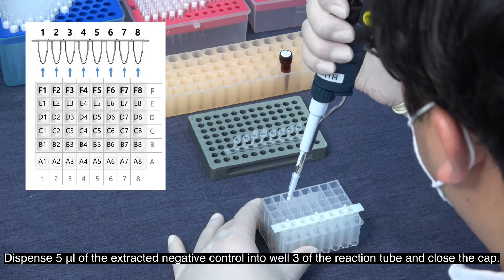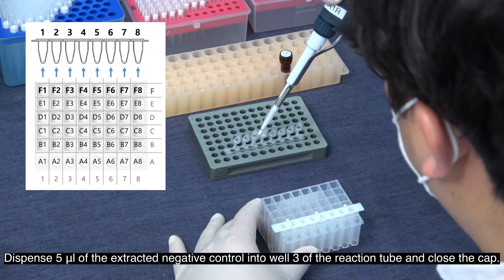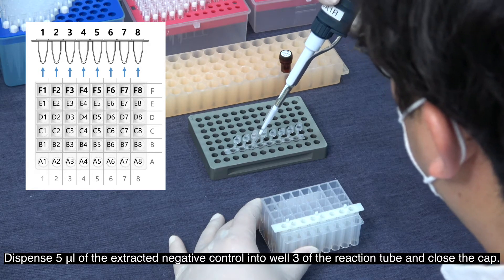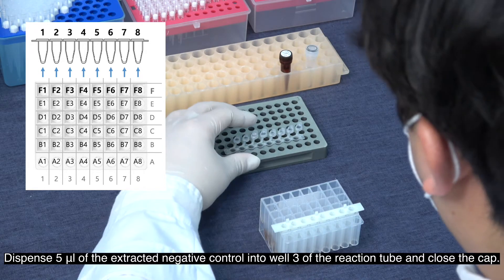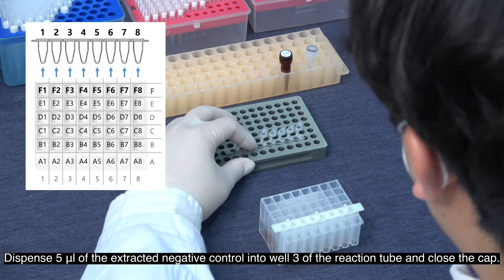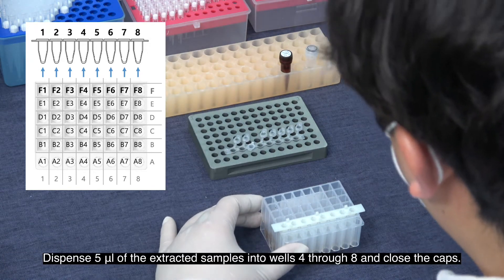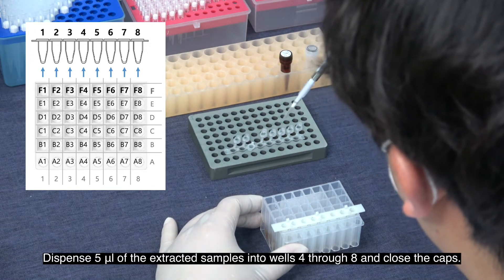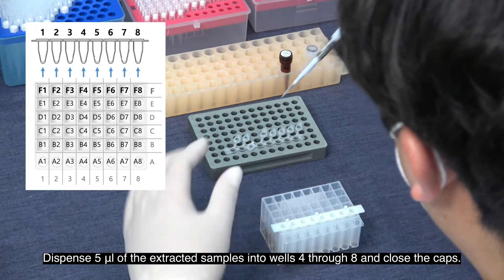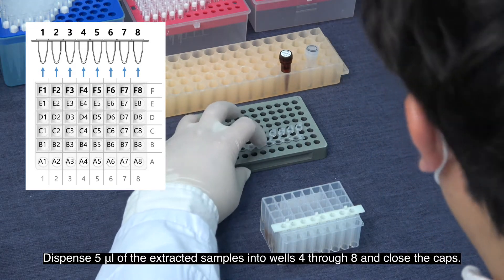Dispense 5 µL of the extracted negative control into well 3 of the reaction strip and close the cap. Dispense 5 µL of the extracted sample into wells 4 through 8 and close the caps.